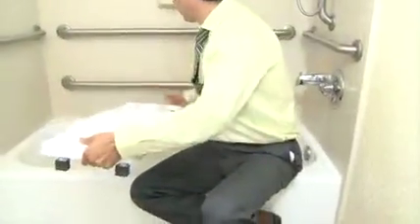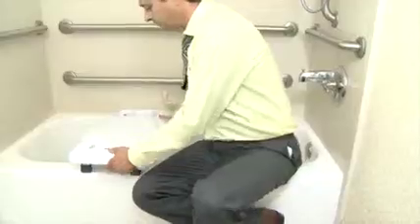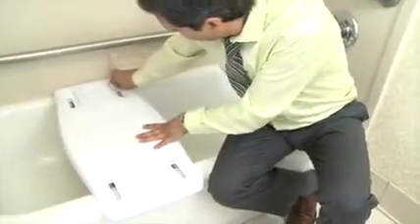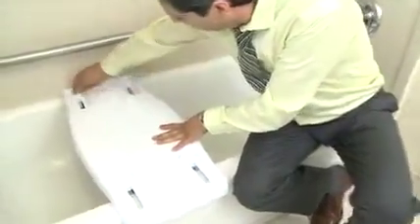Place the bathing board along the top of the tub, straddling both sides evenly. After positioning the bathing board, lock it in place per device instructions. The bathing board should be placed so a seated person will face the faucet and have sufficient legroom to enter the tub.